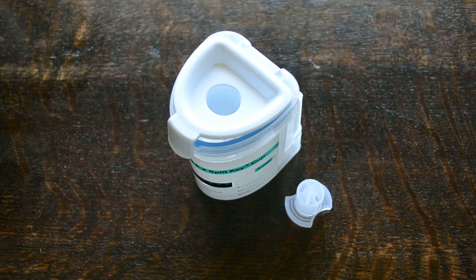This product is available from UK Drug Testing. The standard carton size is 25 tests, each individually foil wrapped. They have long expiry dates. Accuracy on all membranes is between 97 and 99%. The product has CE certification, FDA certification, TUV, GMP, and ISO certification.